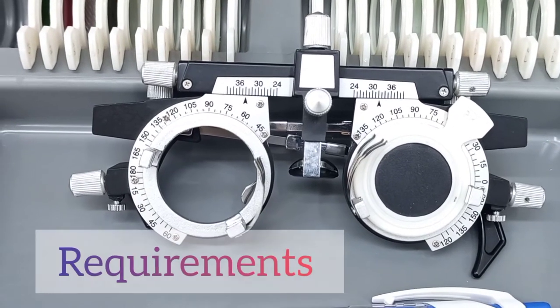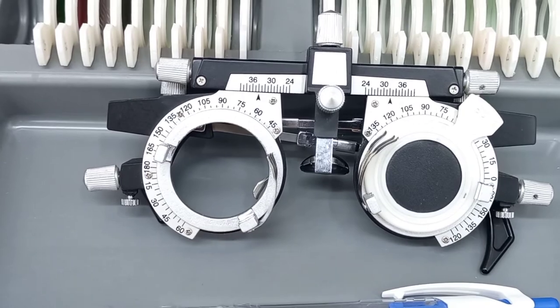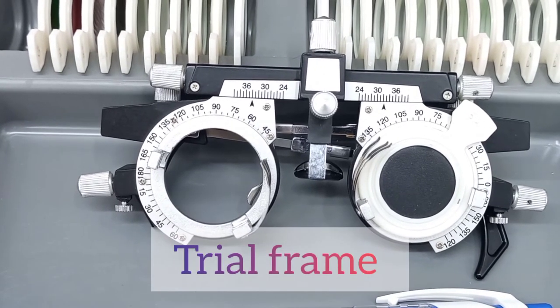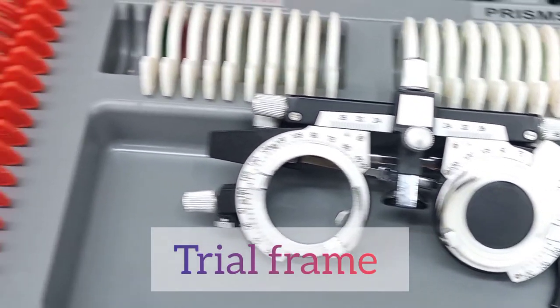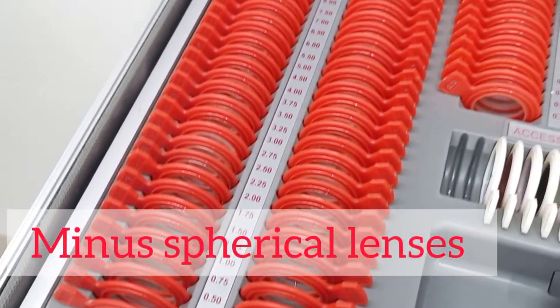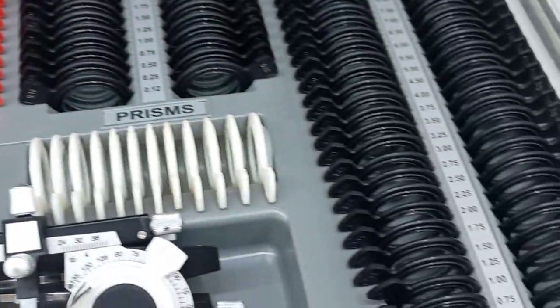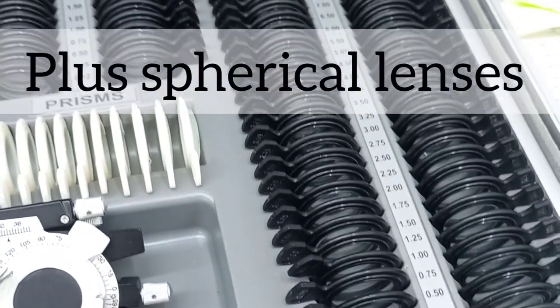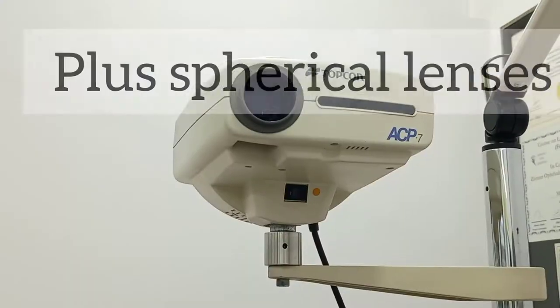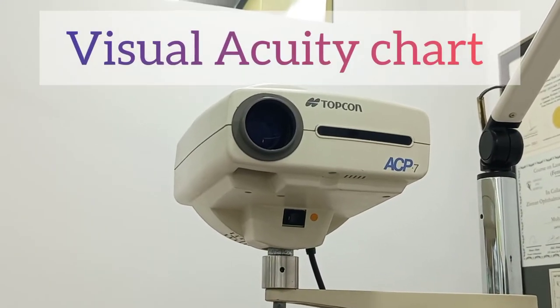The requirements for this step are: first, a universal trial frame; second, a range of minus spherical lenses and plus spherical lenses; and third, a visual acuity chart.